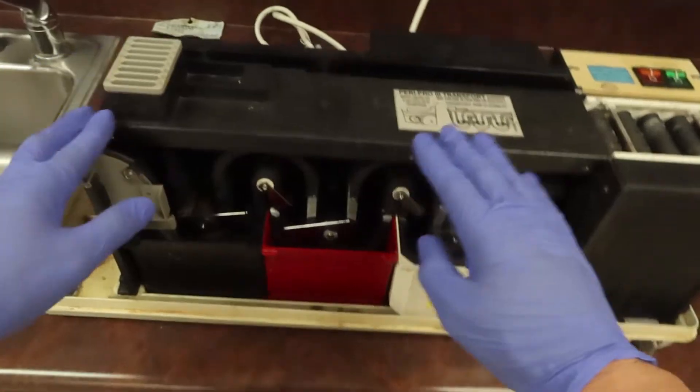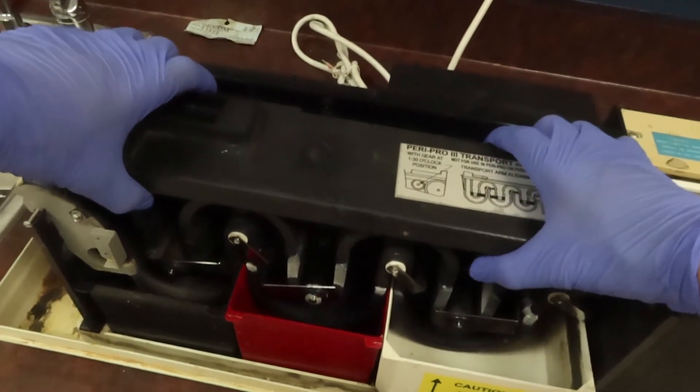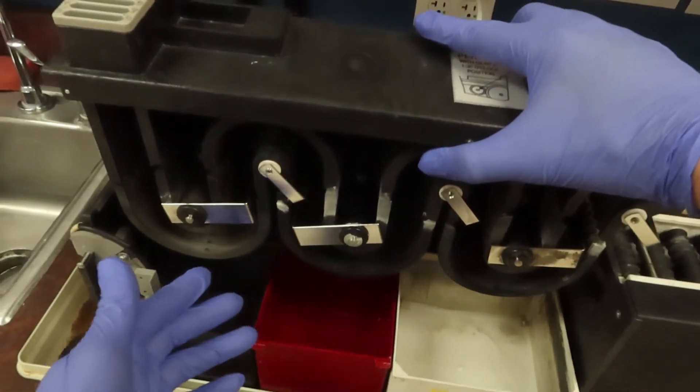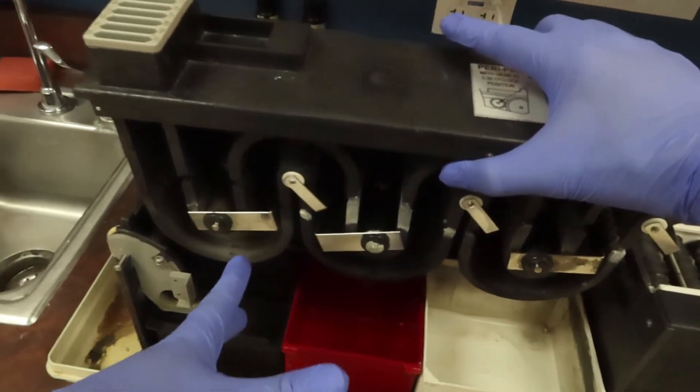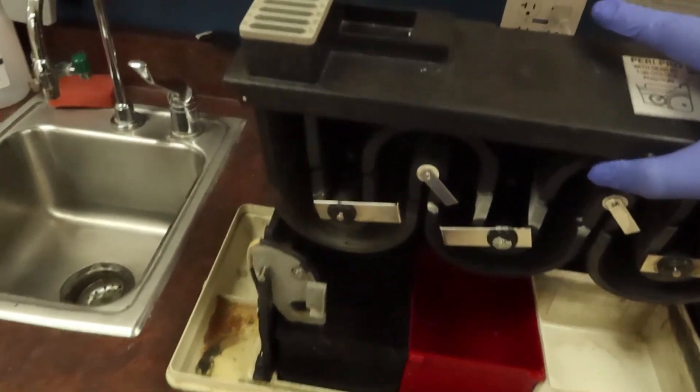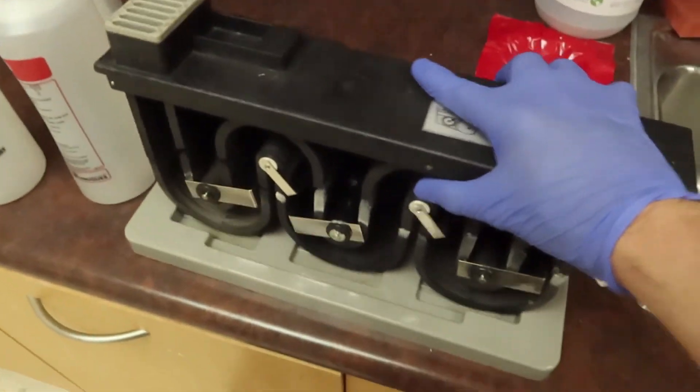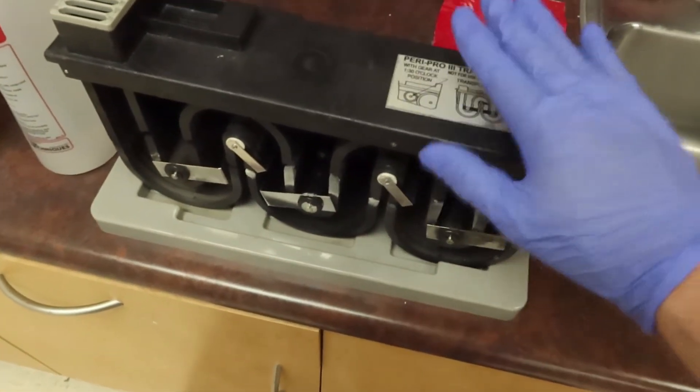We're going to pull this off, and sometimes when we do that, there's going to be a lot of splash and liquid in here that's going to fall and try to splatter. Try to reduce that and put it on a little rack over here that's going to hold my pieces while I do maintenance.